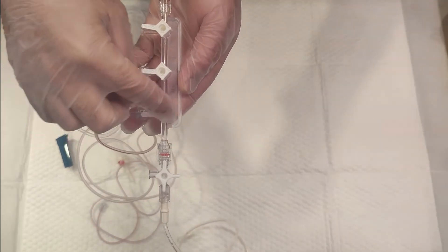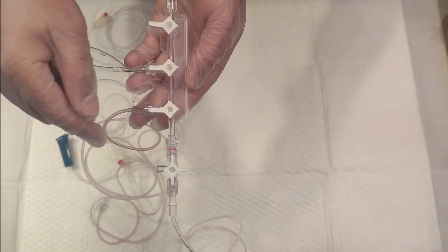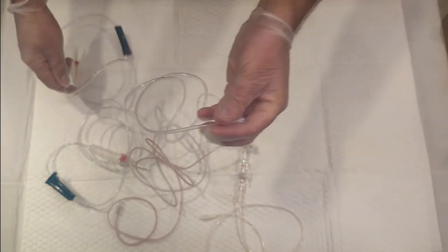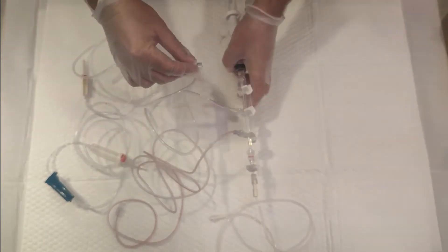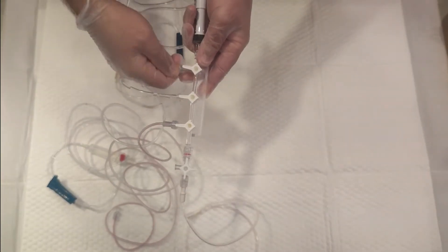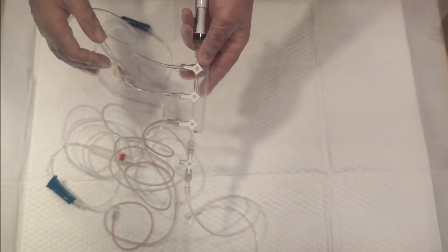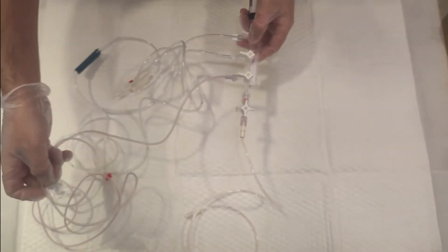Now the last line is the contrast tubing. Similarly, attach it, rotate it to lock, and tighten it to avoid any potential error. Now, the question is how to utilize it.